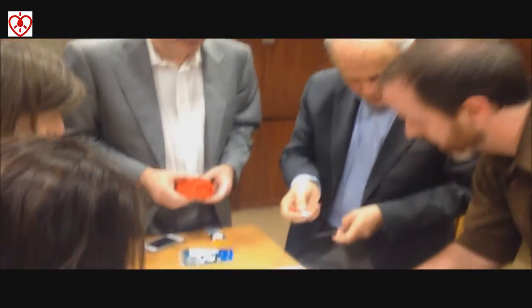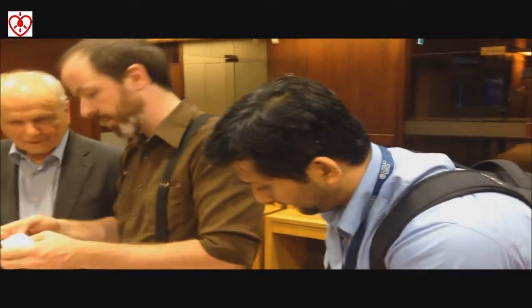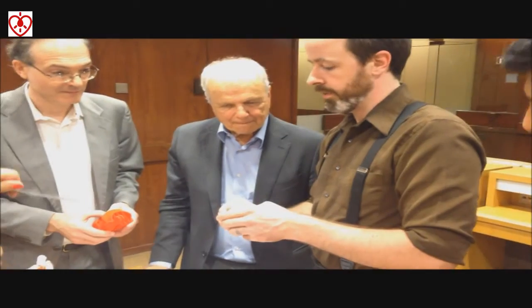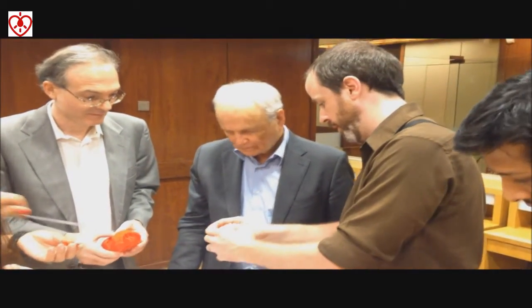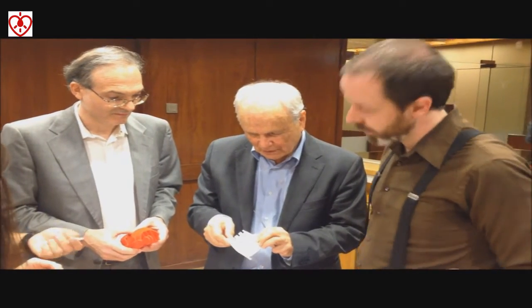Nunu and his family are interested in learning how to build these as well, and Salome will be the person who can teach them. Is this a smooth one now? What we do now is touch-fitting — this might need to be filed more. It's not only smooth, but it's smaller. Feel the way those kind of slide together — that's a pretty good amount of friction. That's great.